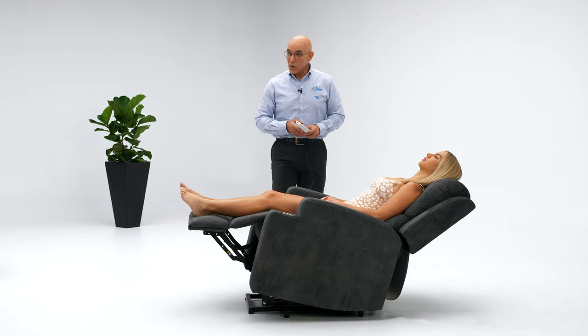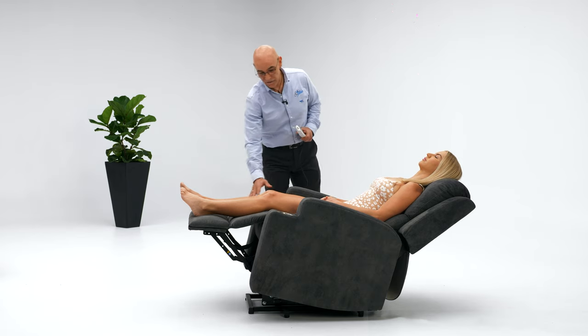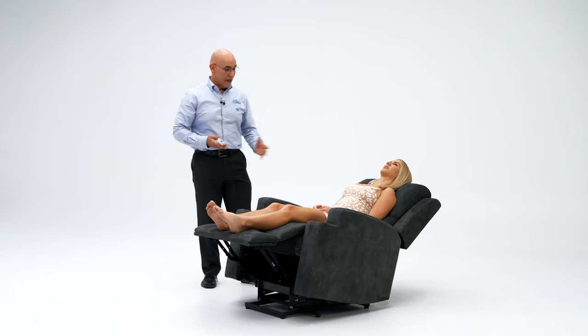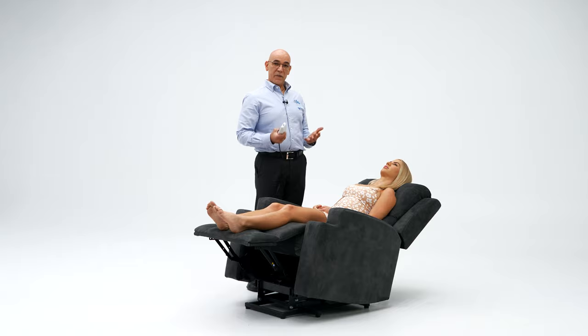As you can see, the chair is orthopaedically designed to follow the natural shape of the body, supporting ankles, calves, knees, lower back, neck and shoulders. At that same position it has also opened the airway, so it assists with better breathing as well.